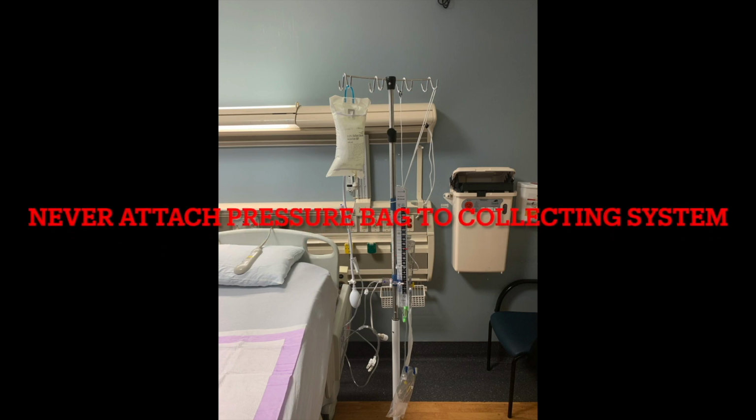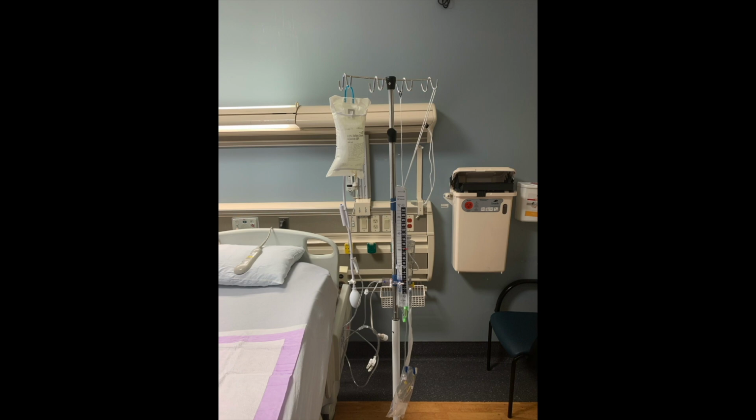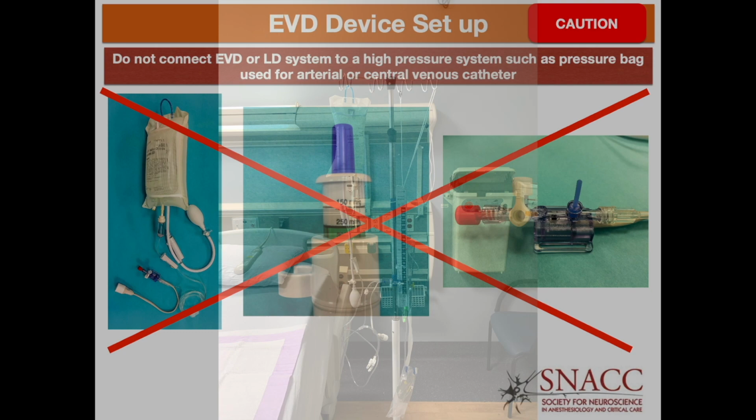An EVD collecting system should never have a pressure bag attached. If you come across a collecting system with a pressure bag, immediately disconnect, inform the primary team, and obtain imaging, because this may lead to an increase in intracranial pressure and/or herniation and death to the patient.